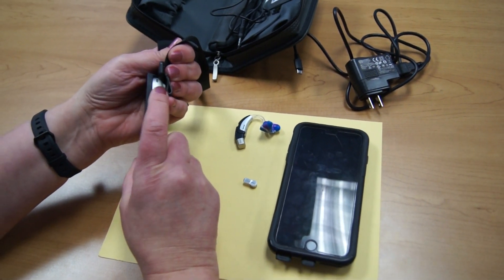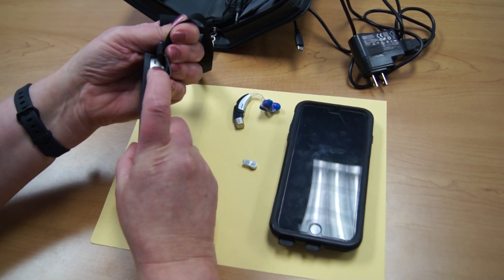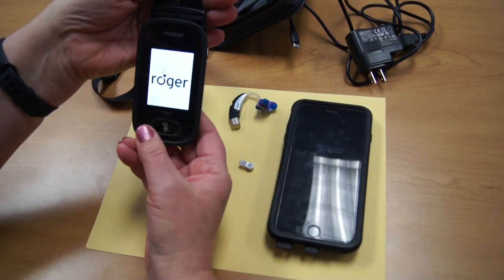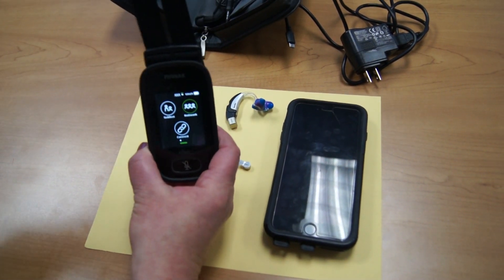With the transmitter, the on-off is on the side. Hold the button down until it starts. This device can only be worn with a lanyard.